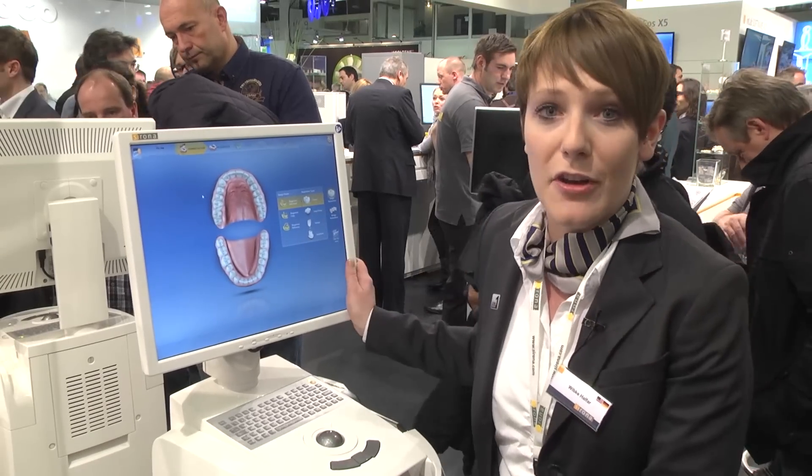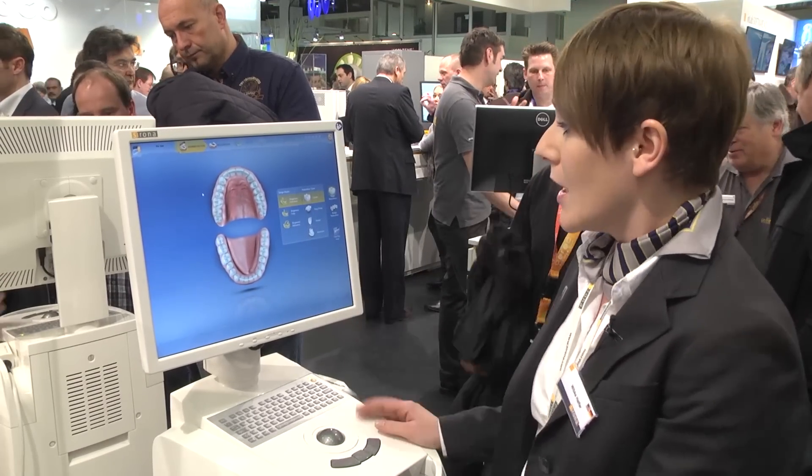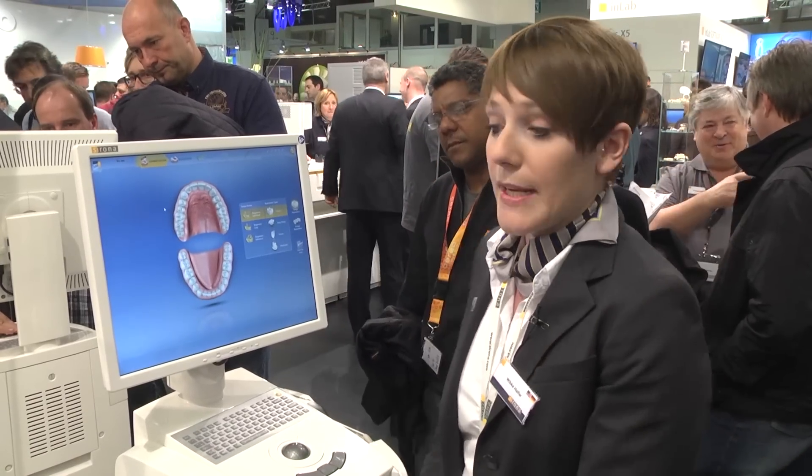You see here the starting point of the software 4.2. What's new about it is that we can now do the abutment chair-side — that means directly with a patient in only one session.